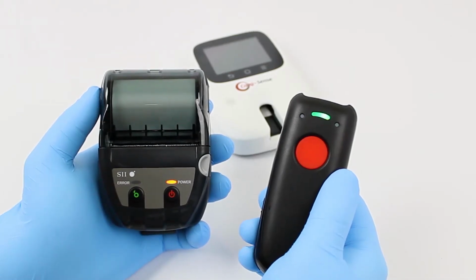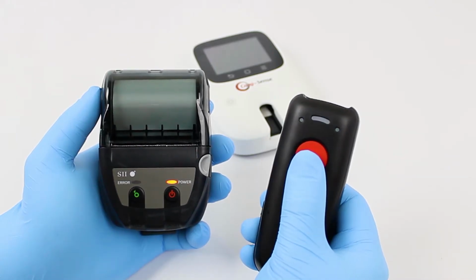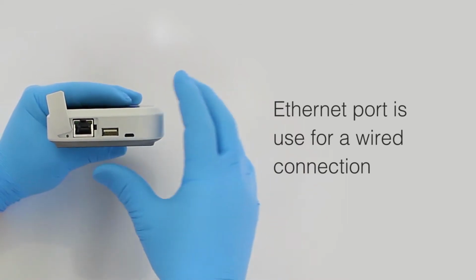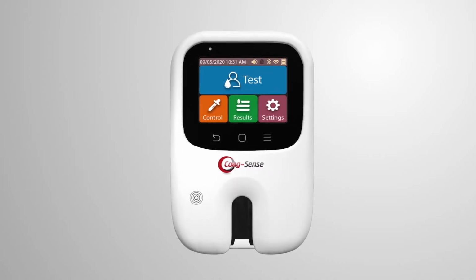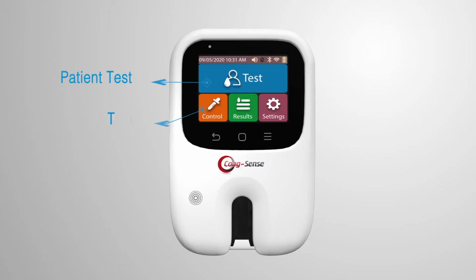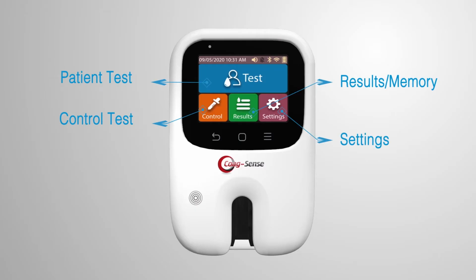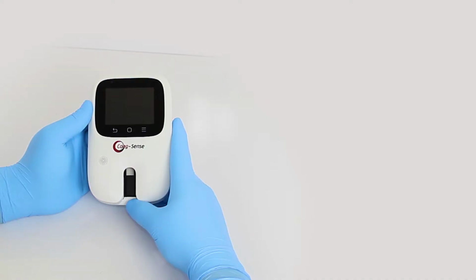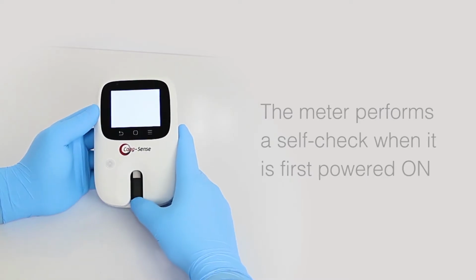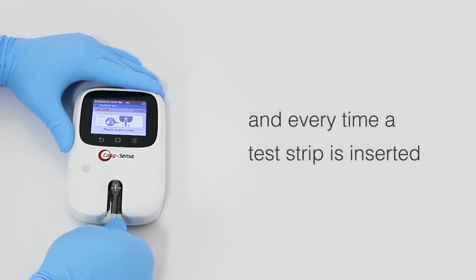Printer and barcode scanner can also be used wirelessly. The Ethernet port is used to connect the Ethernet cable for a wired connection. There are 3 touch buttons: Cancel or Previous Screen button, Home Screen button, and View Menu button. The color LCD touchscreen shows icons for patient test, control test, results, or memory and settings. The meter performs a self-check when it is first powered on and every time a test strip is inserted.